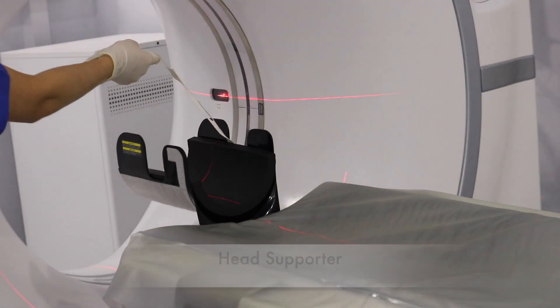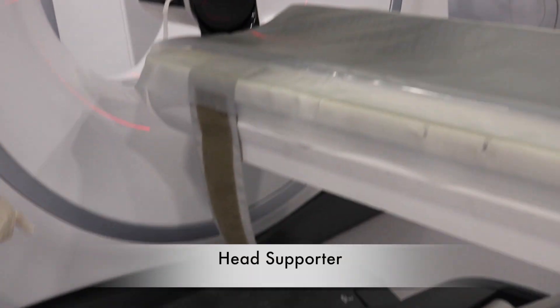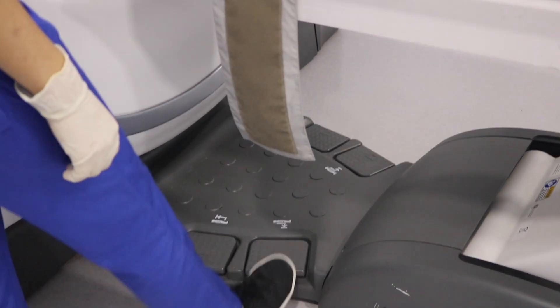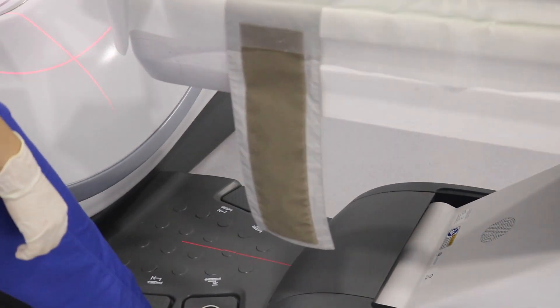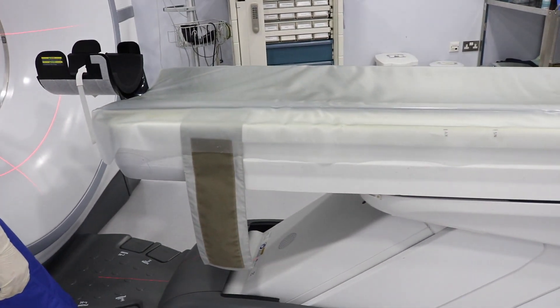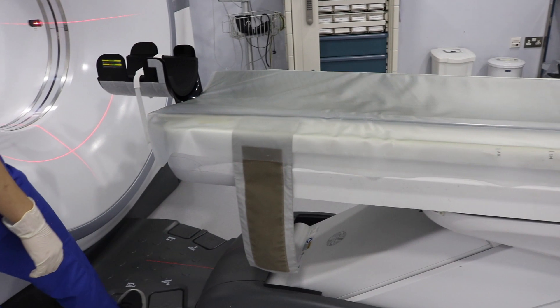Here we have the head supporter. Here we have the buttons that are used for table movement for manual control before the procedure starts. The movement of the table in between the scans is controlled by the computer.